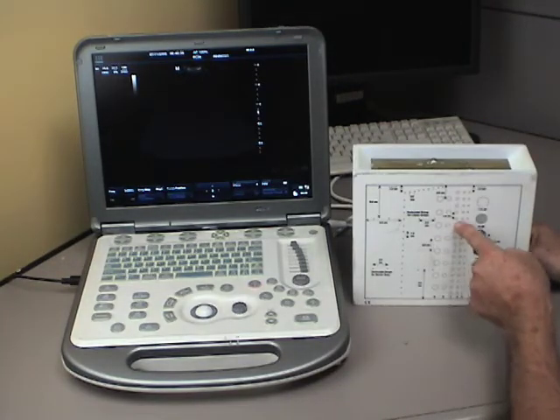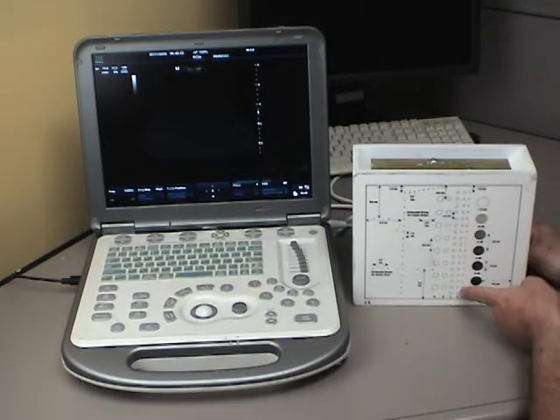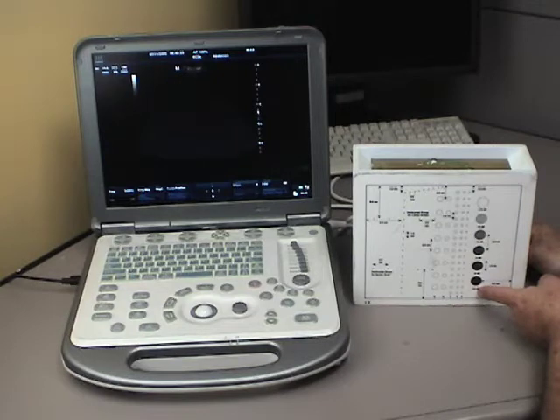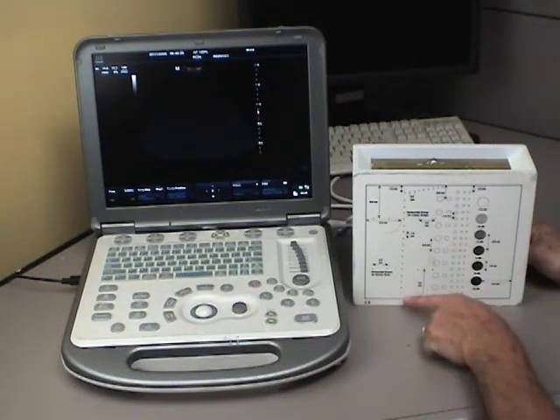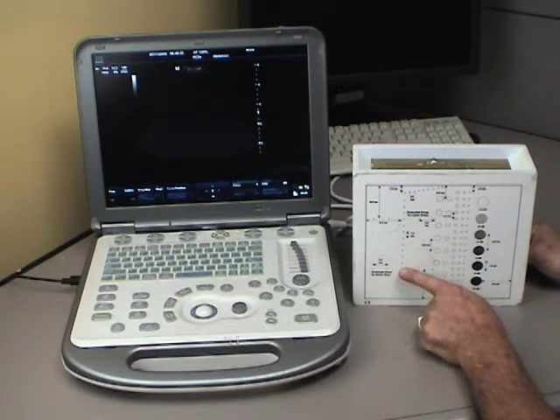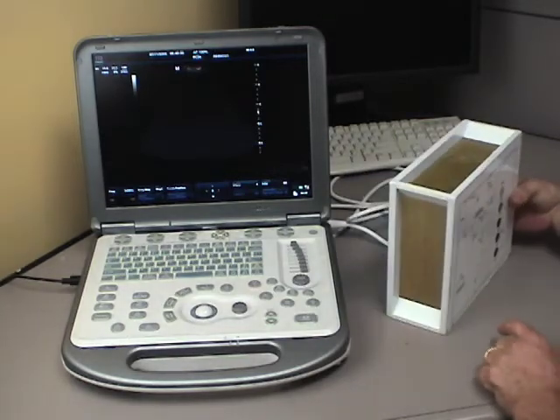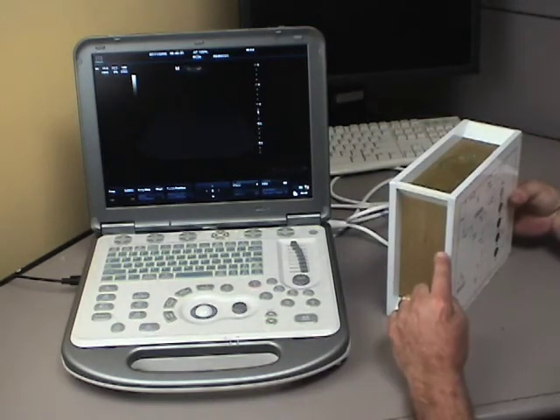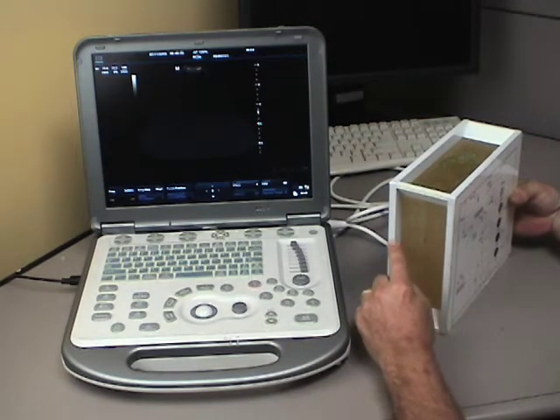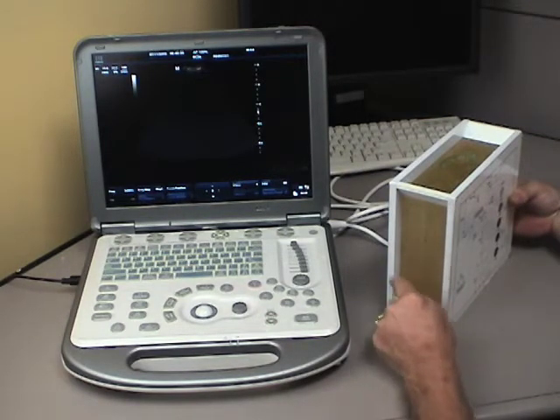Over here, this is the same thing, only these rods are all clear. These vary in their density. Over on this side, what looks like pins as you scan the image are actually, again, wires, very thin 1mm wires typically going through the system this way.